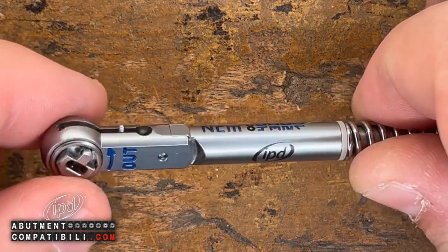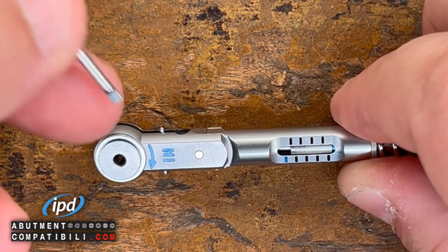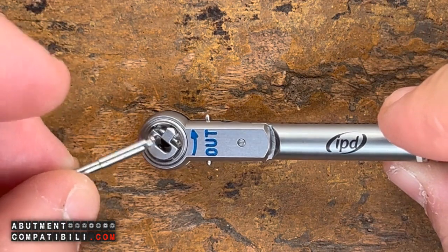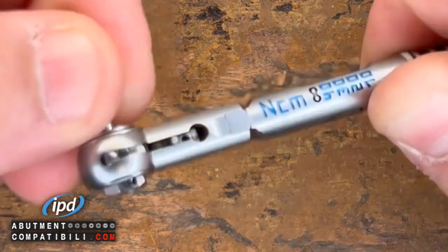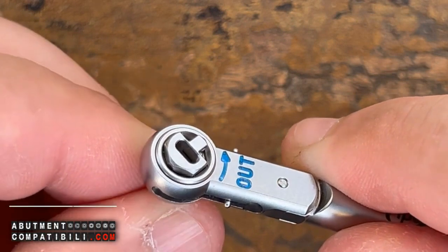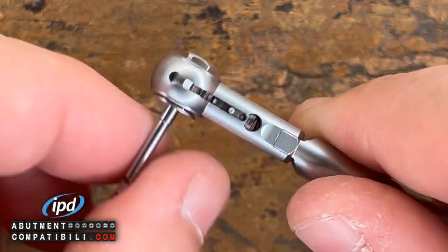How do we insert the tips? Let's take any screwdriver — right now we will take a cutting screwdriver. We have two entrances: this one is the wrong one, and this one is the correct one. So I will insert the tip into its socket till it clicks. Here we see that the click tip has reached the end. At this moment, my ratchet is working.